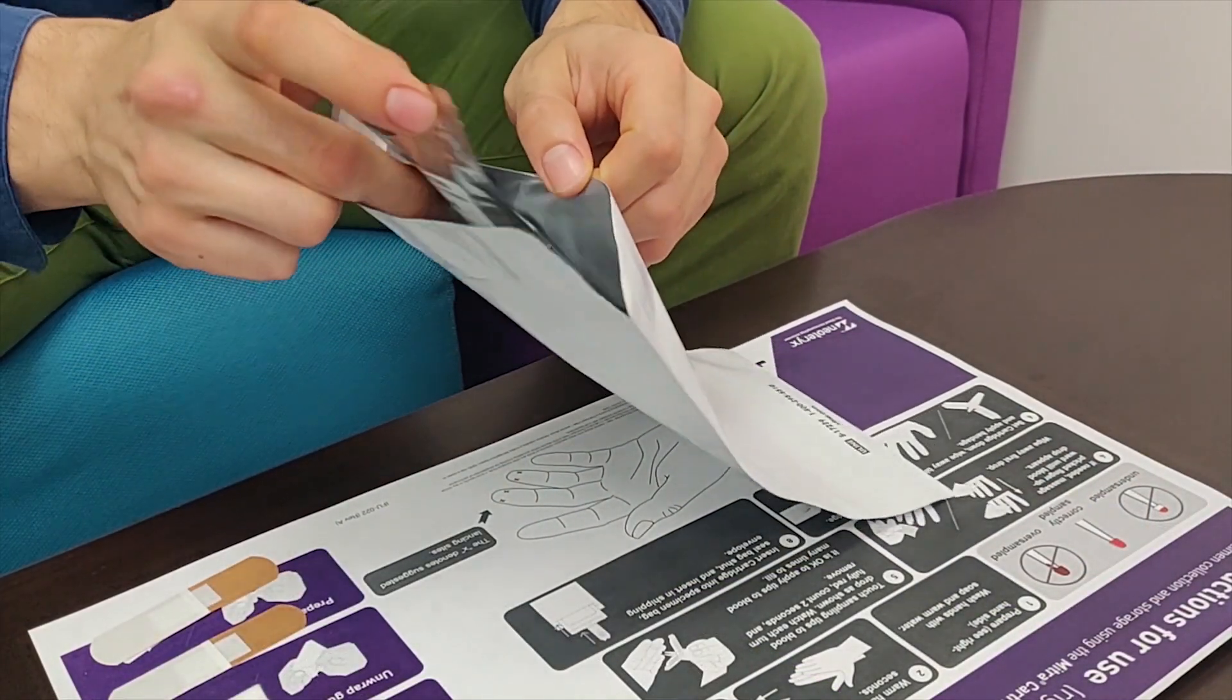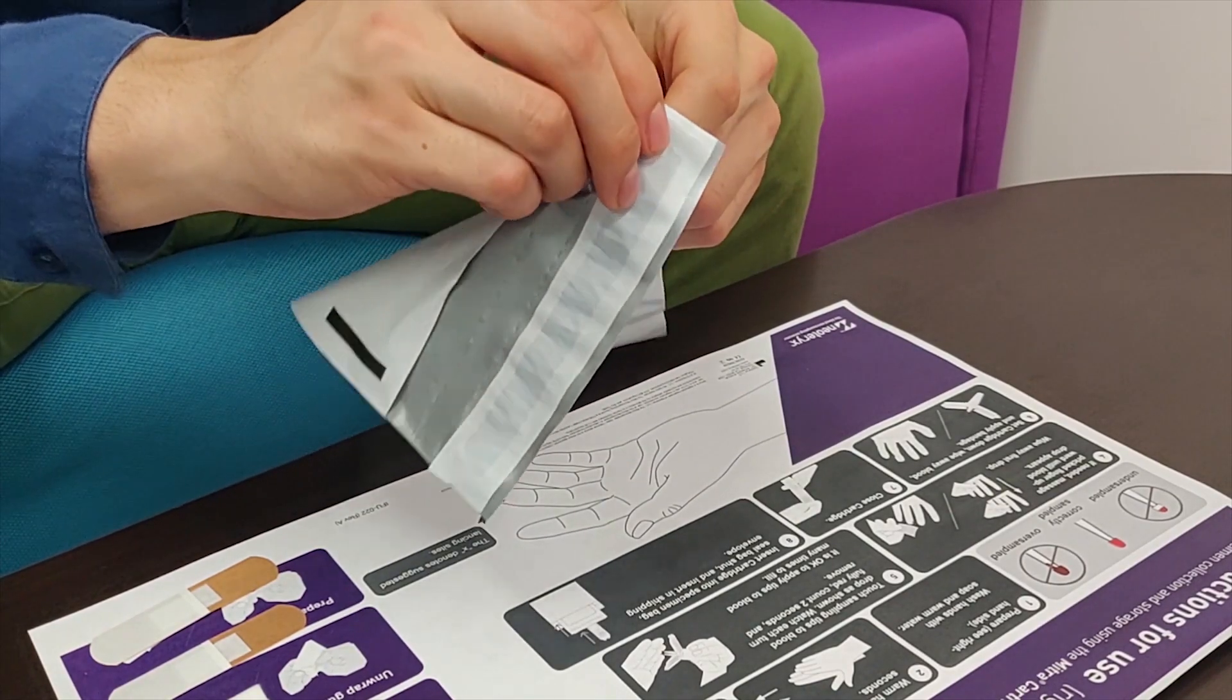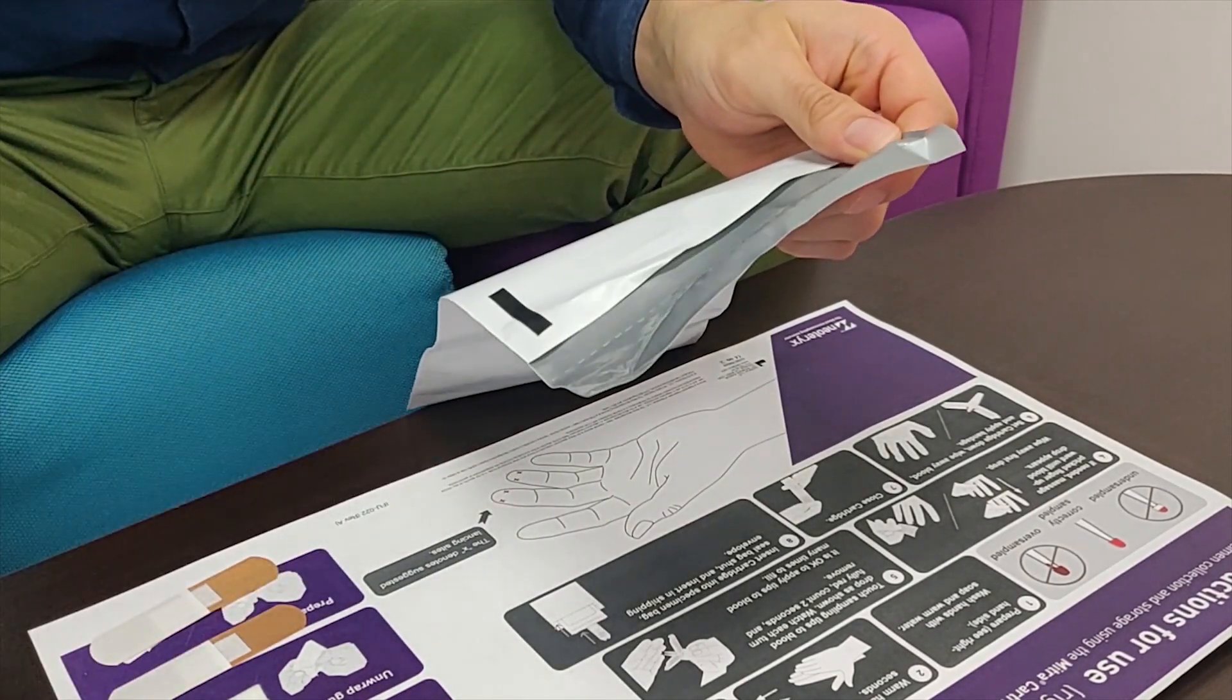Your Mitra samples are now ready to ship. Place the specimen bag in the shipping envelope and put it in the mail or bring it with you to your next clinic visit.